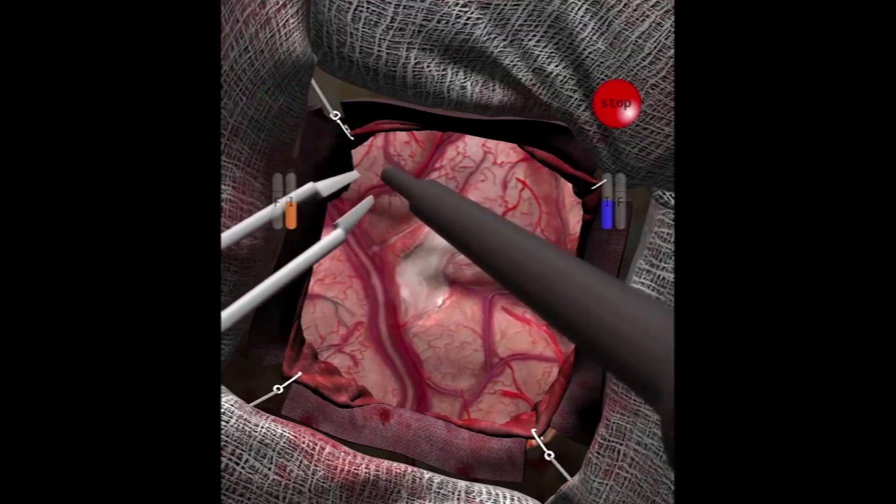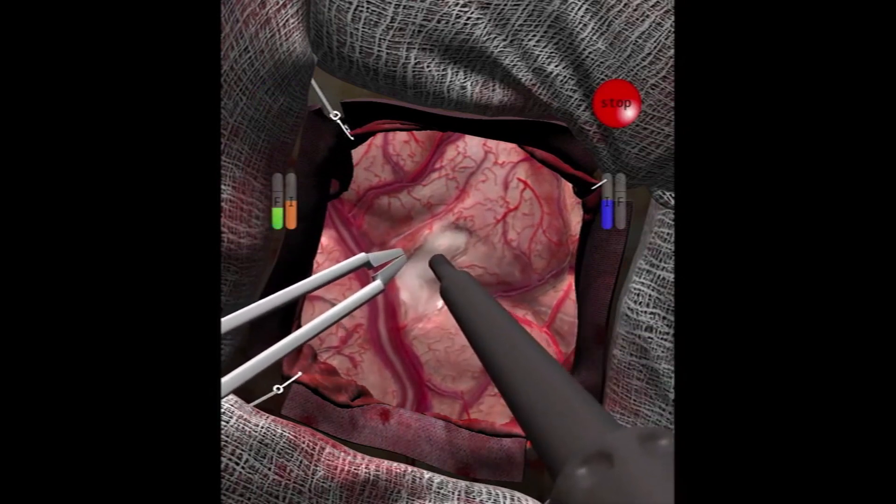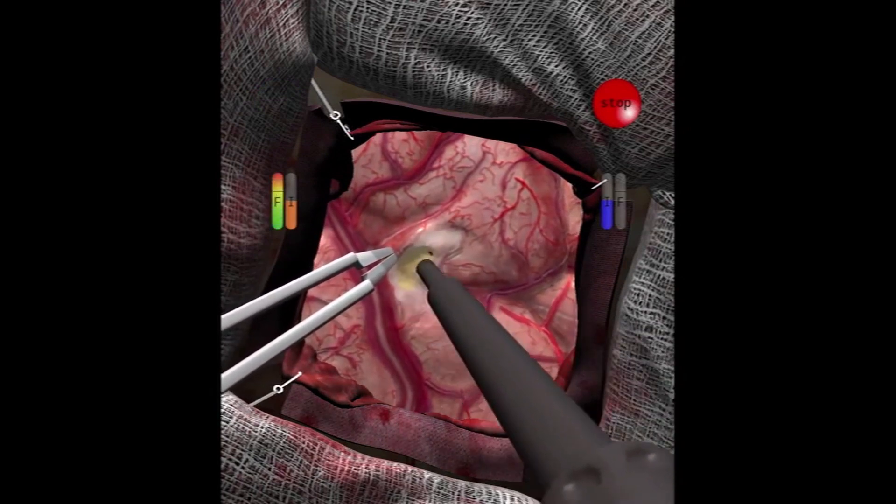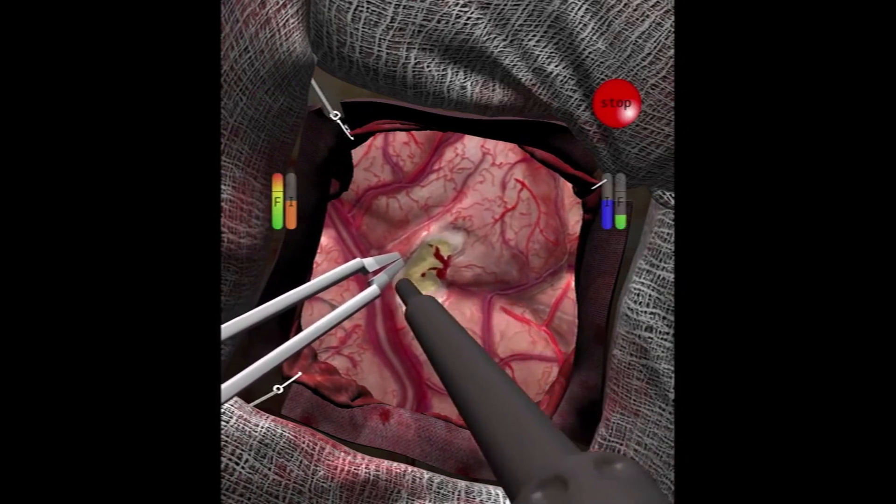The realistic scenario is slightly more complex. The tumor has an irregular shape, there are more blood vessels involved, the brain pulsates and background noises simulate the operating room environment.